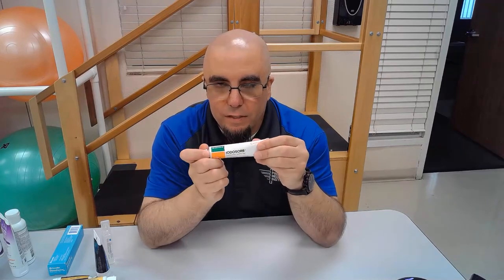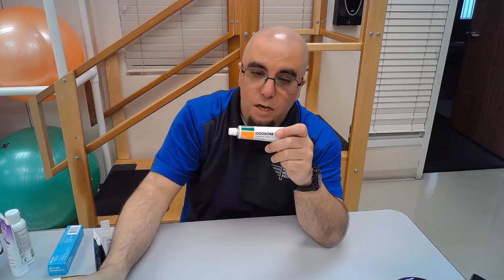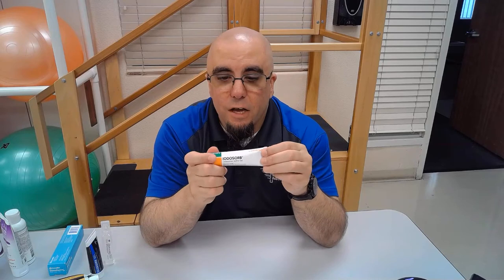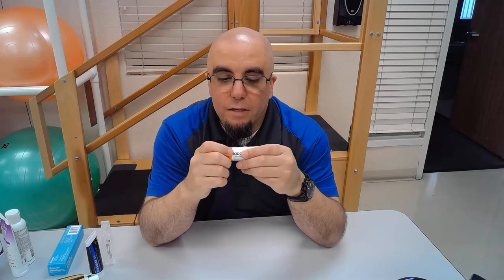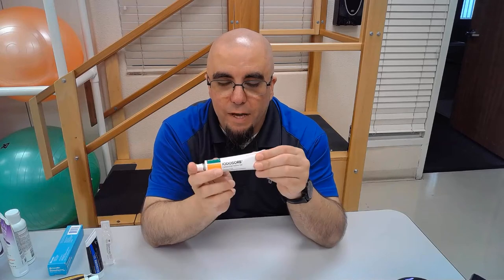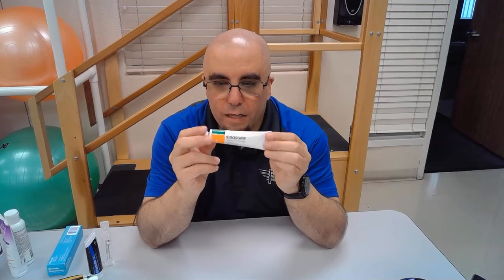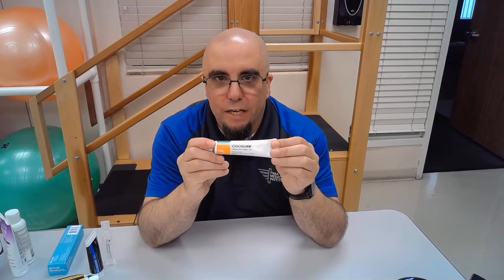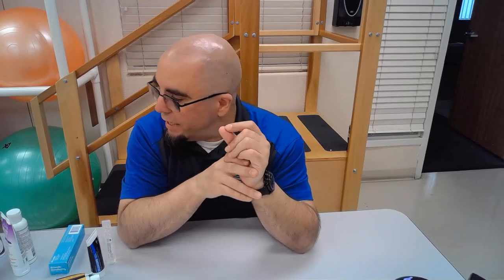We can also use Iodosorb — a cadexomer iodine gel that helps pull excess fluid out of the wound. It goes in one color and as the iodine wears out it changes color, telling you when it's time to change the dressing. It helps kill bacteria, maintain a healthy wound environment, and can even help soften areas that may need some debridement.